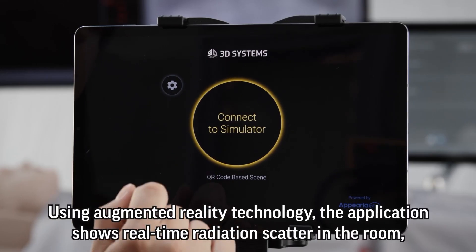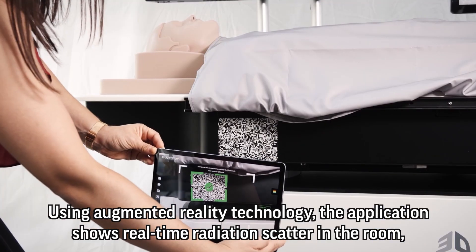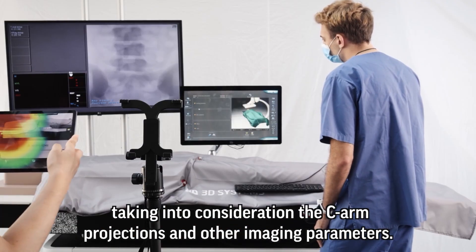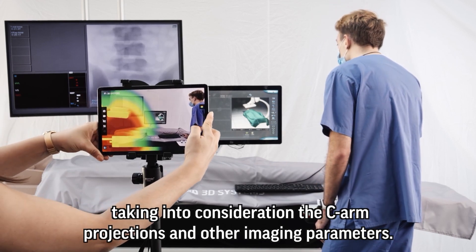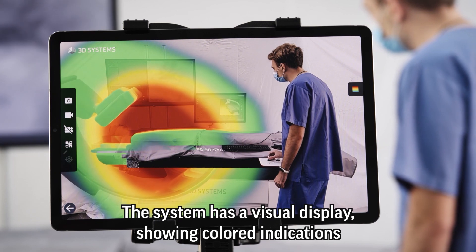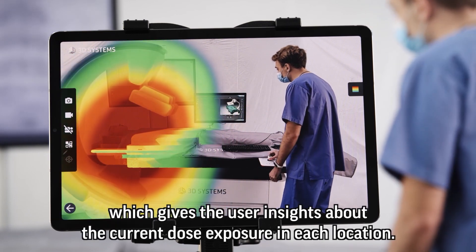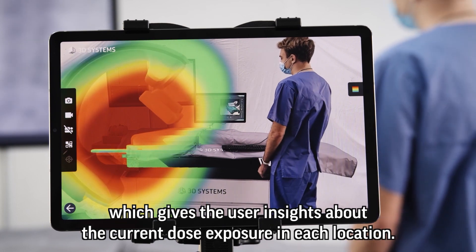Using augmented reality technology, the application shows real-time radiation scatter in the room, taking into consideration the C-arm projections and other imaging parameters. The system has a visual display showing colored indications, which gives the user insights about the current dose exposure in each location.